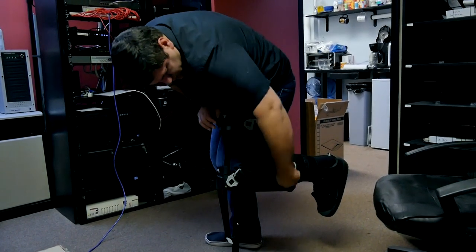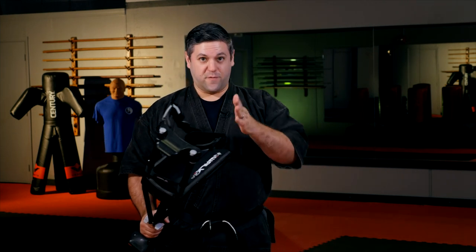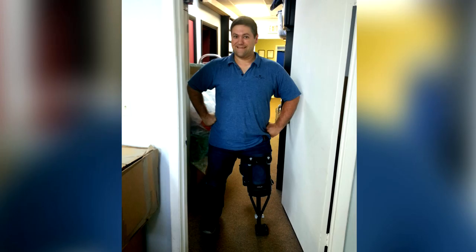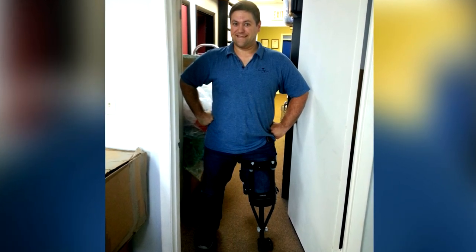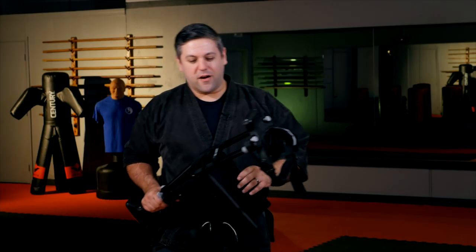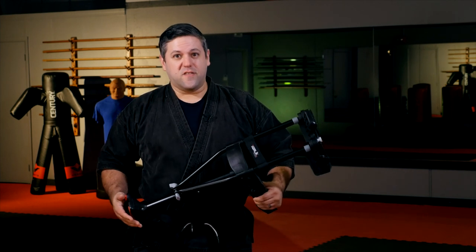With the iWalk Free, some funny stories: if you wear this, be prepared for some funny reactions. The pirate jokes are coming — it's unavoidable. No matter where I went, everyone's like, 'Ha ha, you look like a pirate — it's basically a peg leg.' But on the funny side, you can really mess with people, because when you're wearing it and facing someone front-on, your knee is behind you, so it actually looks like you lost your leg. That was a little morbid joke I had walking around — it was kind of funny to see reactions for the first time.